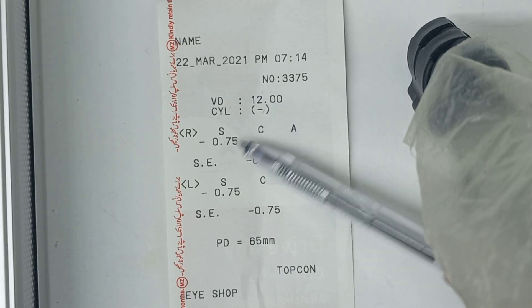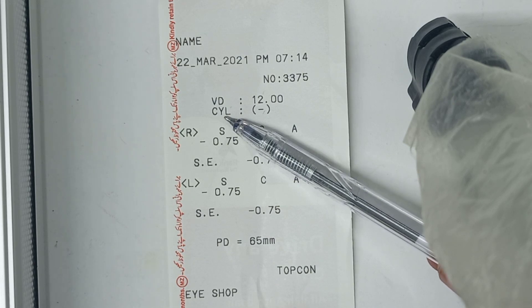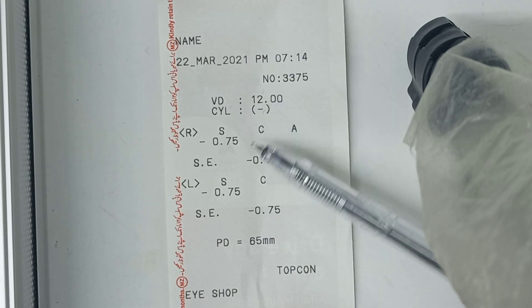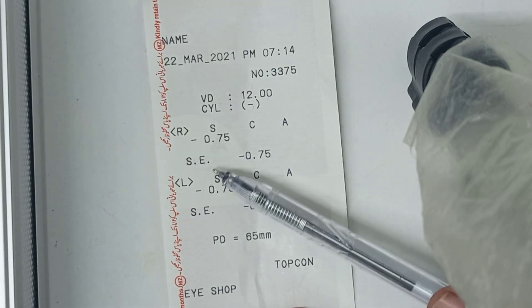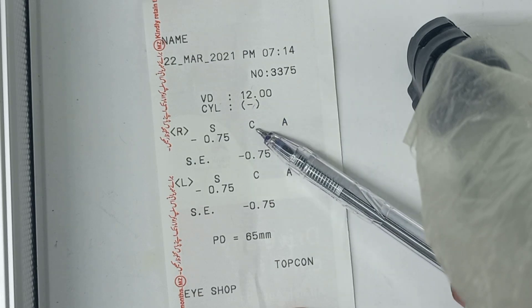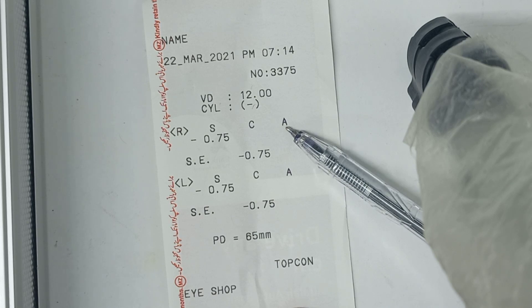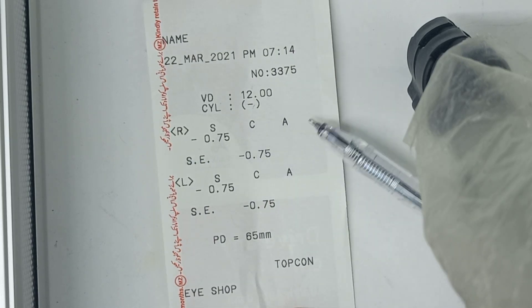CYL means the cylindrical correction, and the cylinder in this auto refractometer is in minus mode, so it will give minus cylinder. R stands for right eye. S means spherical correction, C means cylindrical correction, and A means axis of the cylindrical correction. This patient has minus 0.75 spherical with no cylinder and no axis.